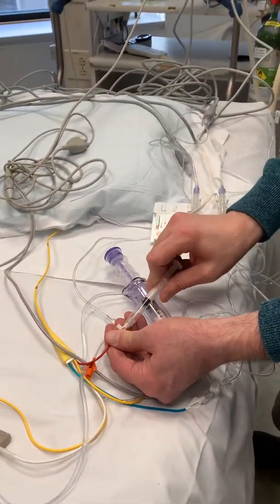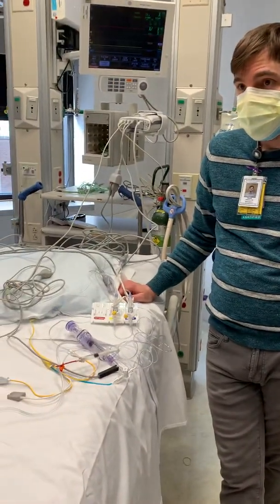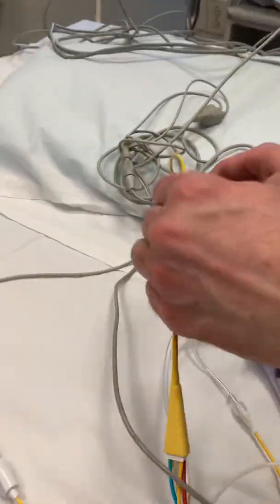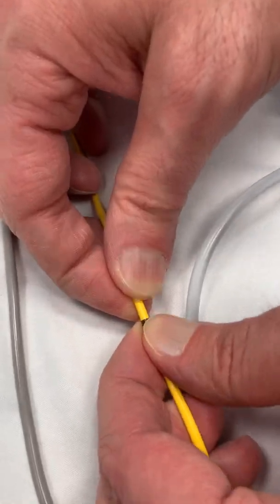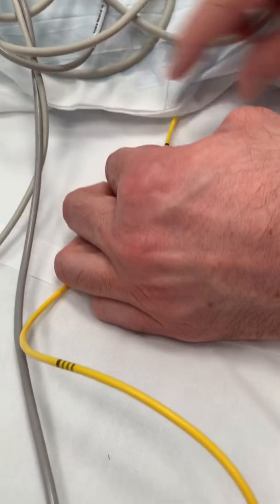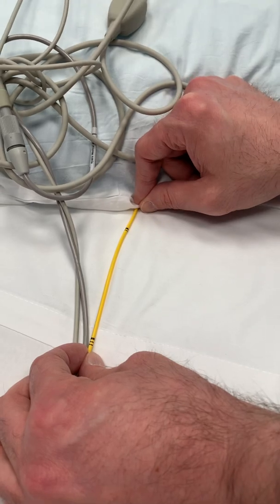We don't do wedge on the open-heart patients — we only do it with ICU patients when the doctor's requesting it. As for how to read the placement — the big hash marks are 50 each, so this is 100. The big hash mark is 50. The little ones are 10 each, so this is 90, 80, 70, 60. Let's say it's inserted here — it's a little less than 60, so we usually just kind of guess, like, that's probably about 57 or 58 centimeters.